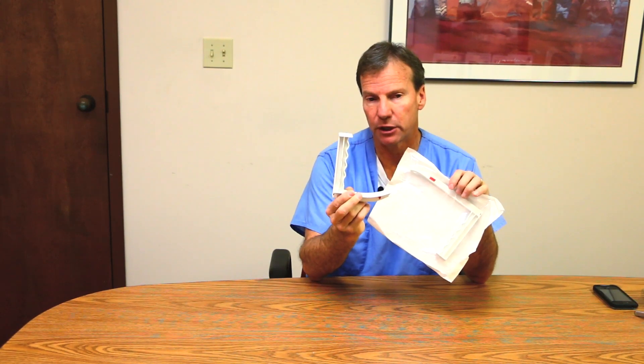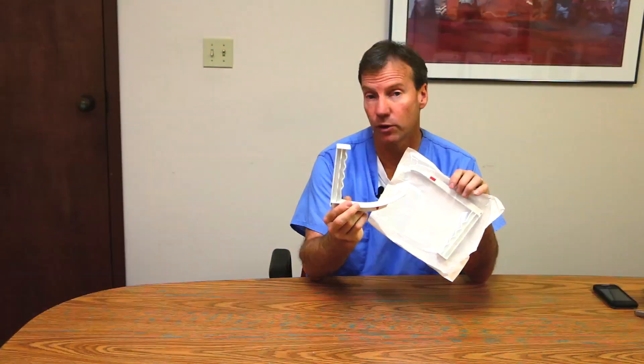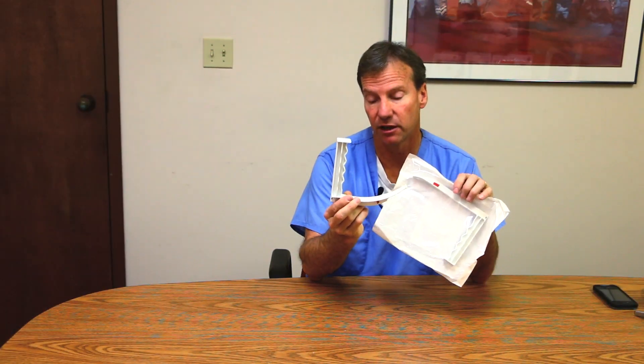You can get a Miller 3 and Miller 4, and a Mac 2, Mac 3, and I do believe it actually goes up to Mac 4 — this one happens to be a Mac 4. It is an interesting device because it has a built-in handle and blade.